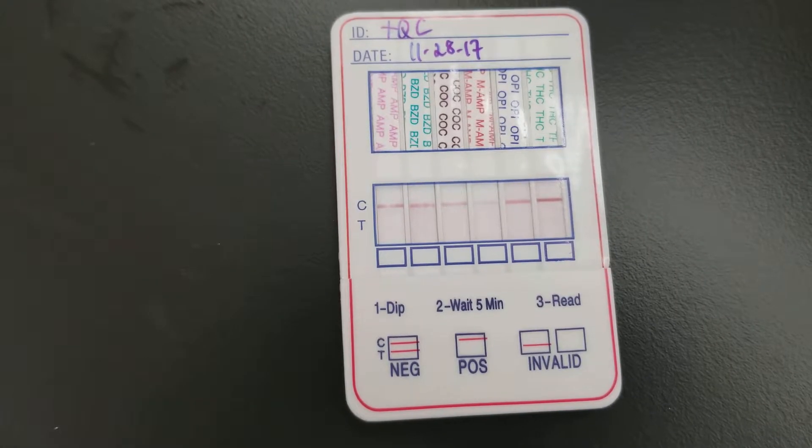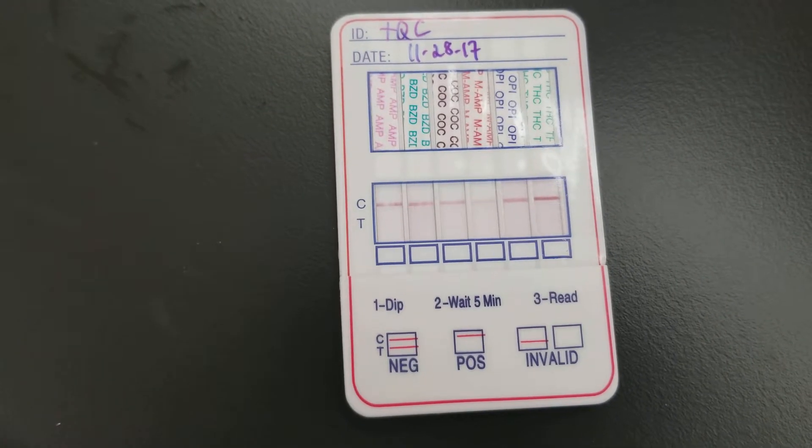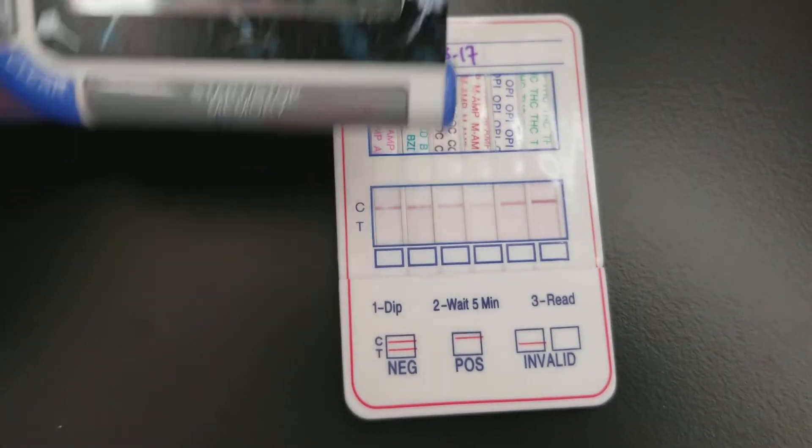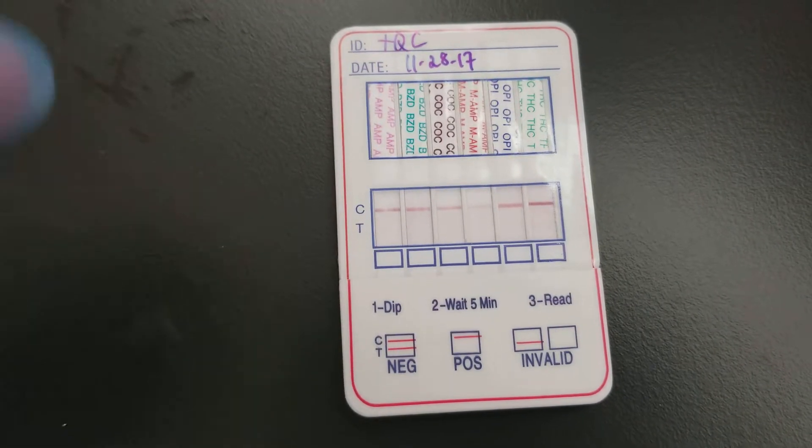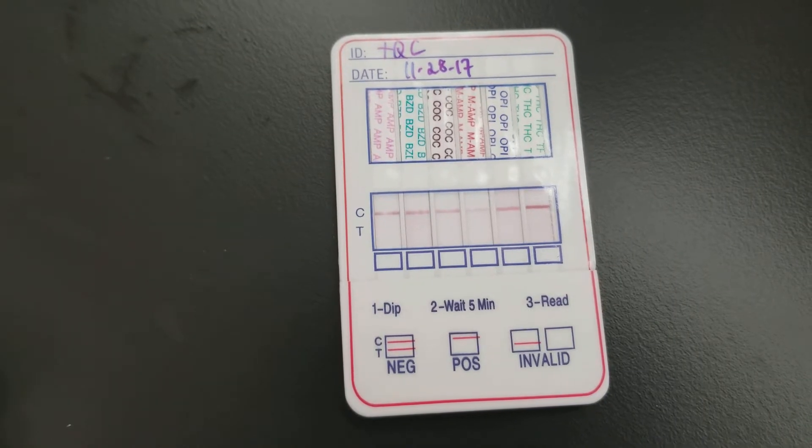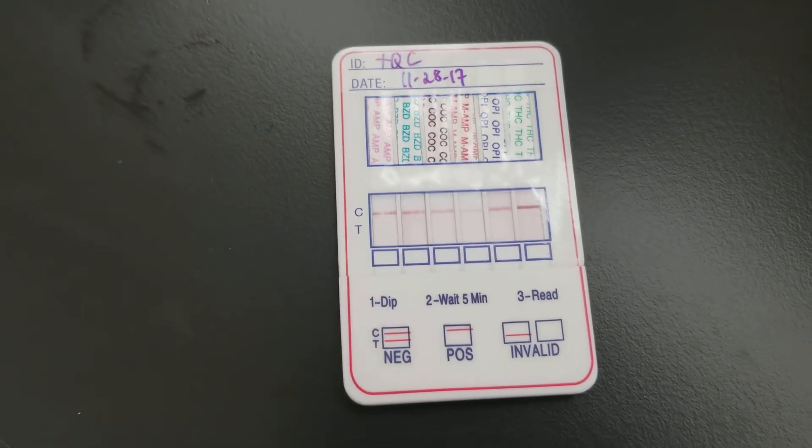Again, this is positive QC, so they should all be positive. We're still waiting on the time. Currently I could say they are positive, but we'll wait. I'll get back to you in just a minute.